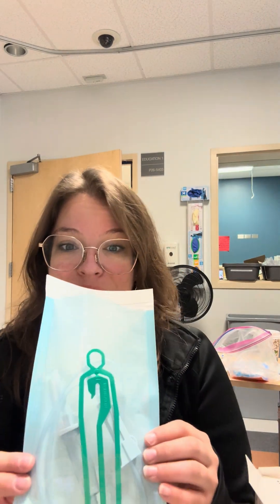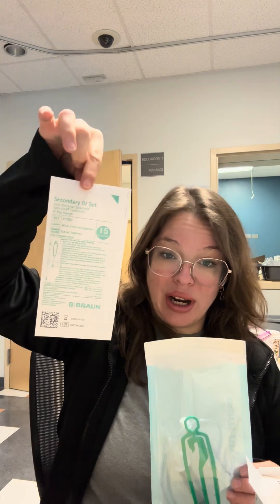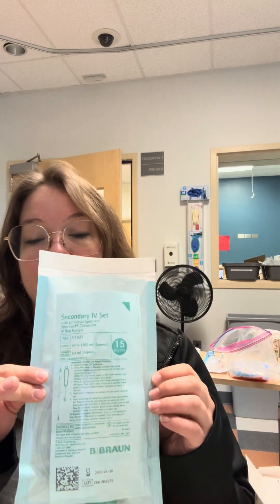So here's your tubing. You've got your hook in there, everything's got a cap on it. We're going to take this photocopied label — don't write anything on the label itself, we're going to reuse this as many times as we can. Now what you're going to do is slide this label inside your pouch.